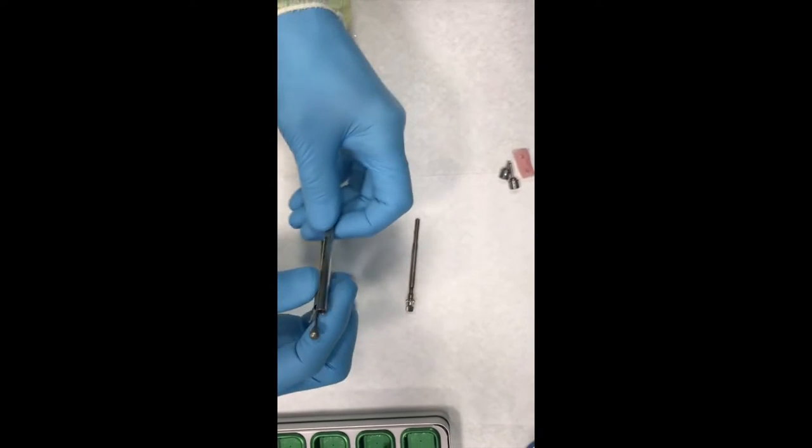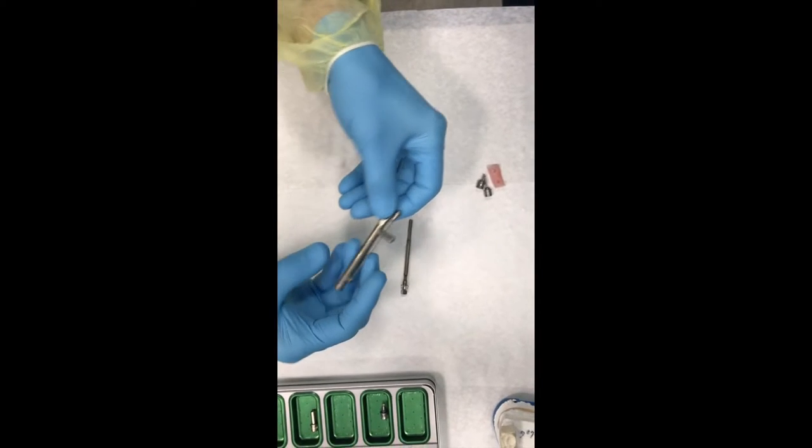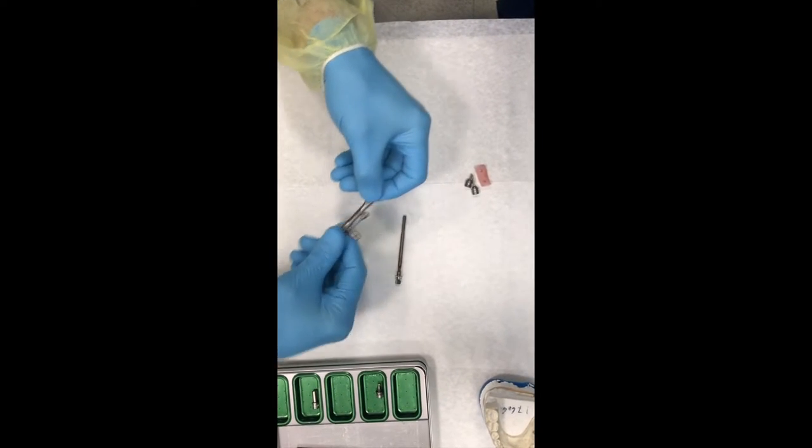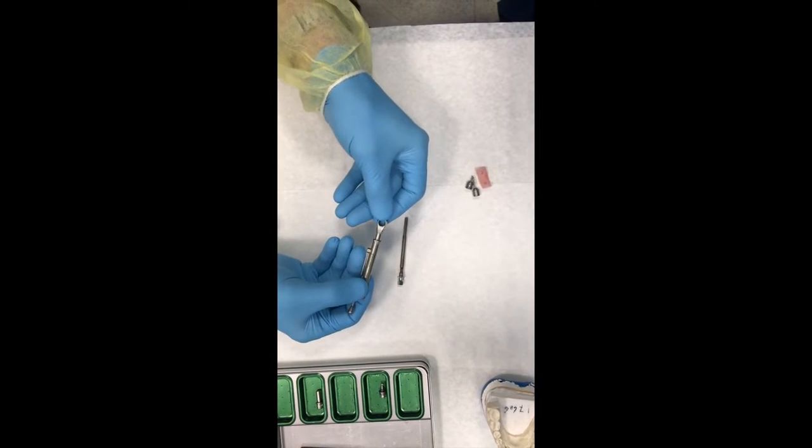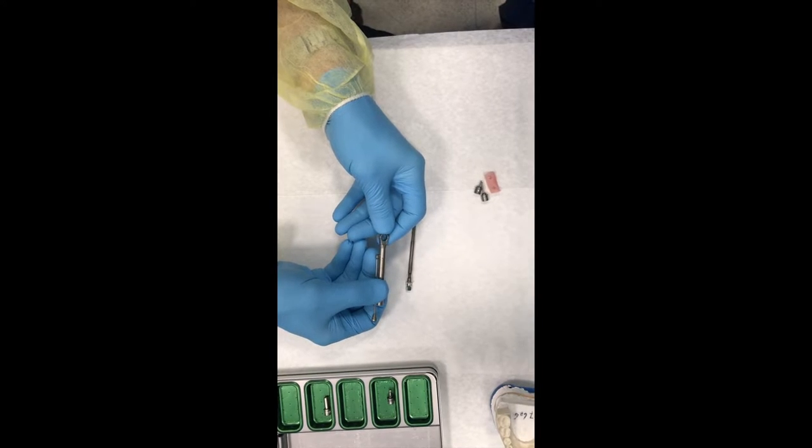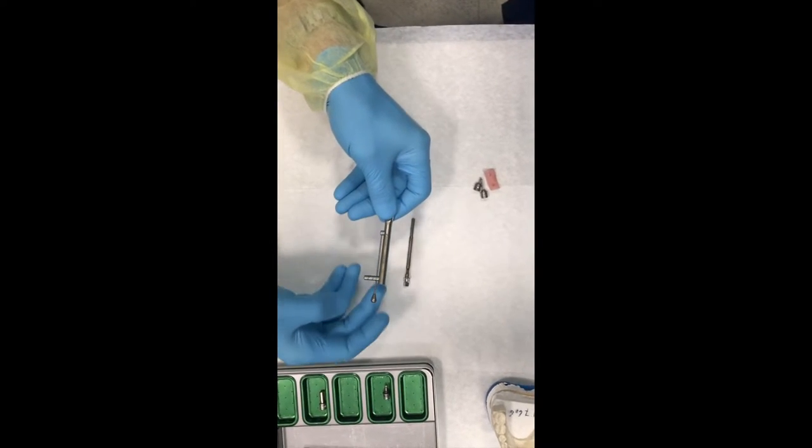When we place this in sterilization, we like to take it apart like this so that all the little parts don't stick together by maybe having some of the corrosion products or the solutions get into those little parts, so you sterilize them separately. And it's easy to assemble. It's really kind of dummy proof. You can't go in the wrong way and have anything fit because this little flange out here is not covering anything. You have to go this way so that it sneaks up right along it like you're putting on a pair of socks.